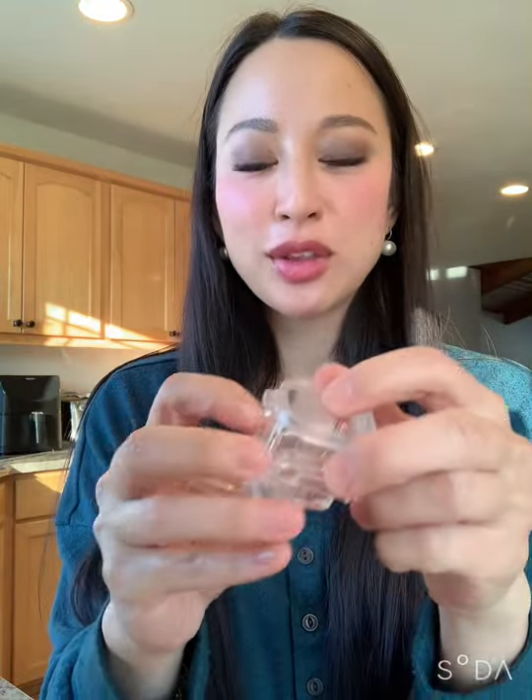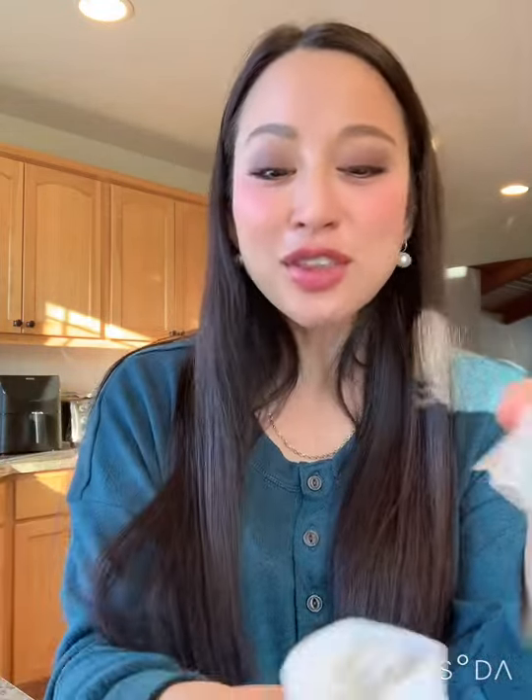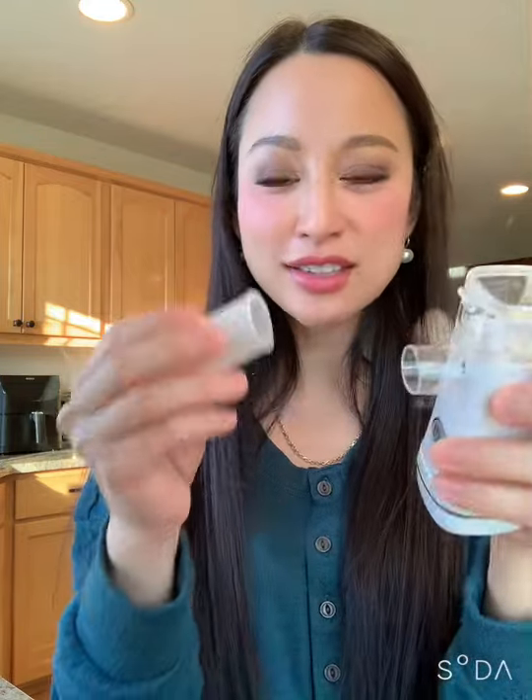On the plus side, a lot of these Amazon nebulizers have a self-cleaning function where you load the reservoir with a little bit of distilled water and then you run the nebulizer on distilled water. Another thing I discovered was that this and this do not go together.